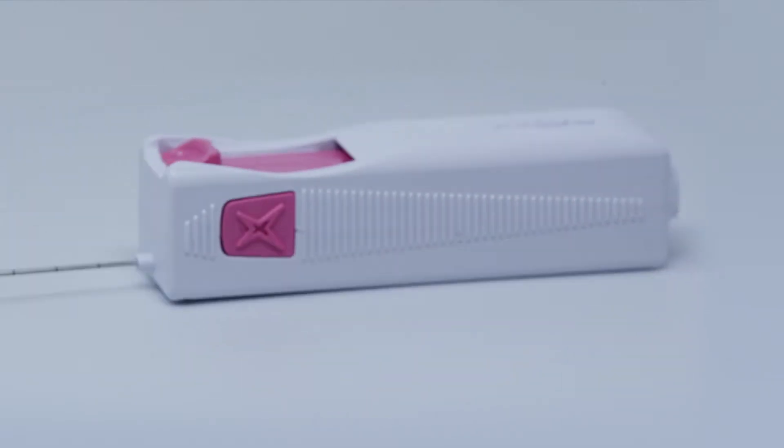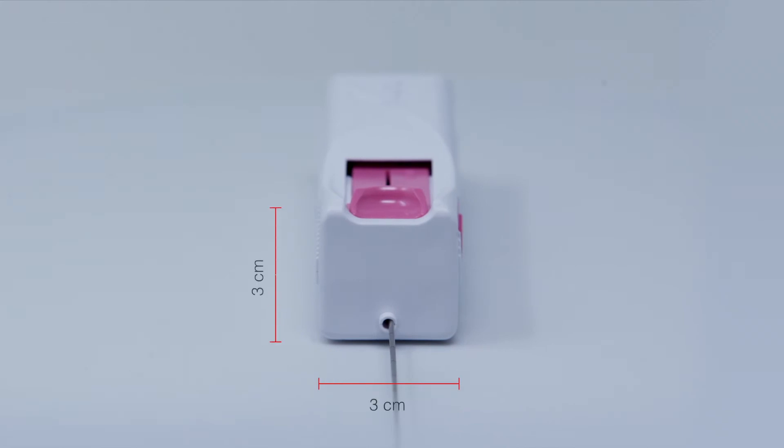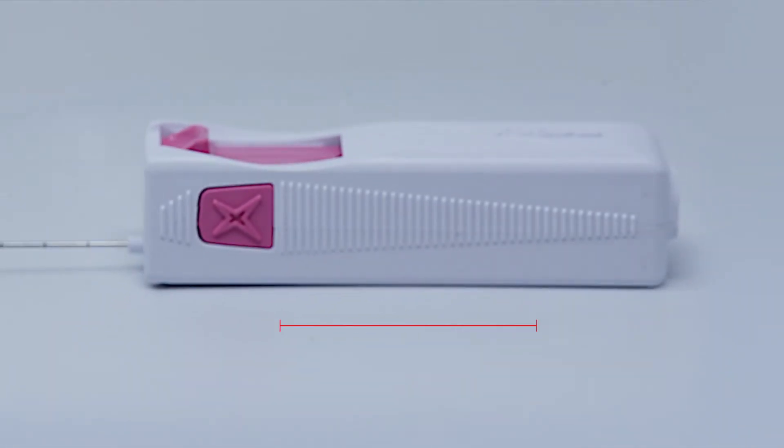MedOne's ergonomic shape, lightweight and compact design make the device user-friendly.